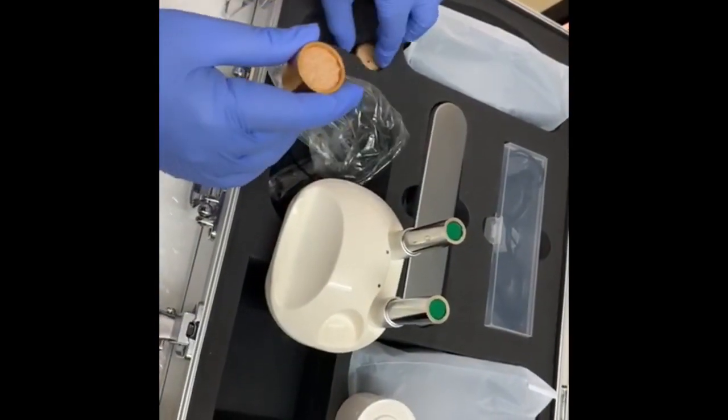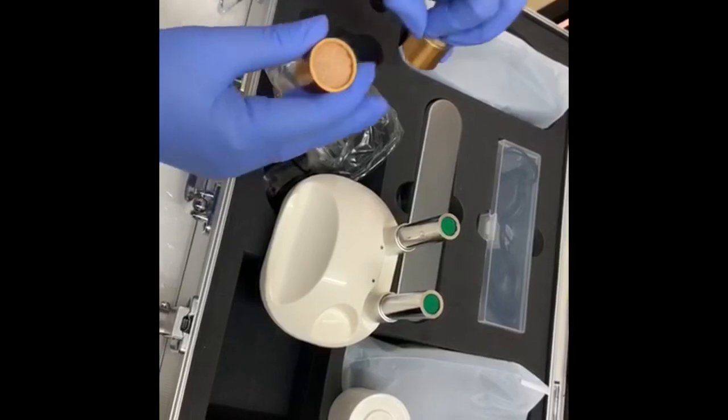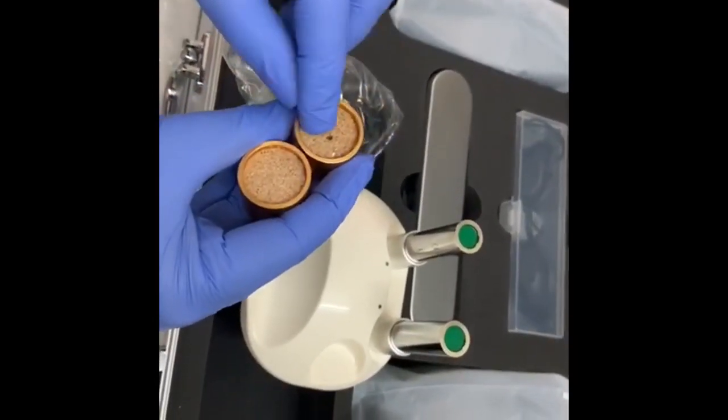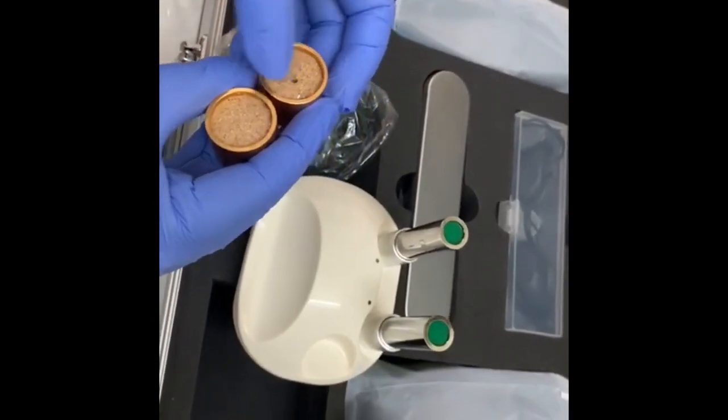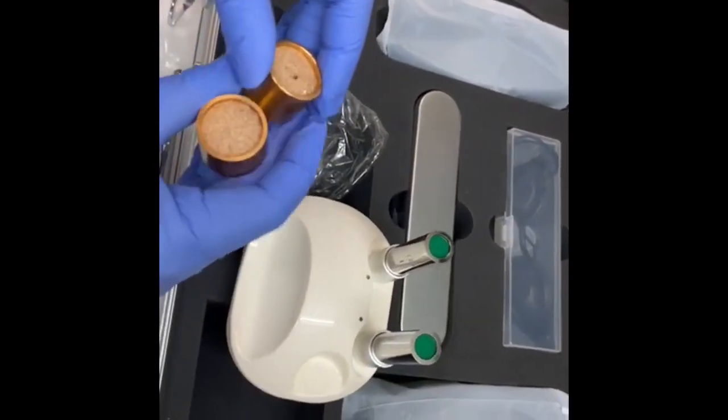These are your tip initiation blocks where you will put your tips here and you will see is it working or not before doing one patient.